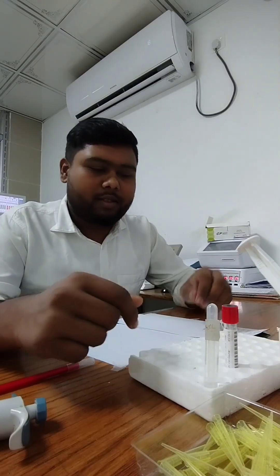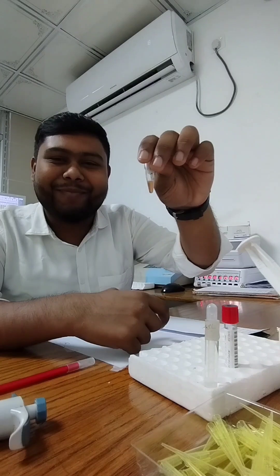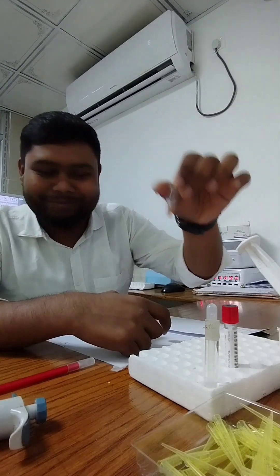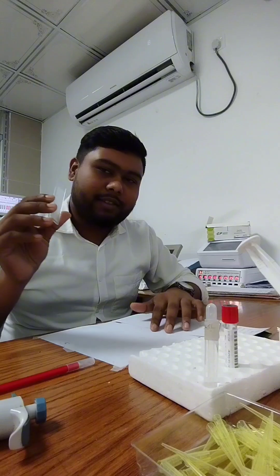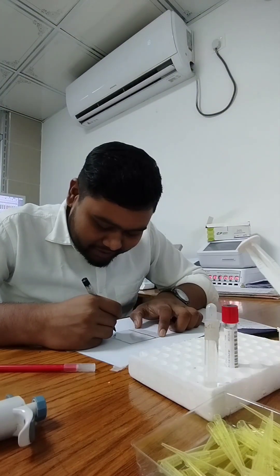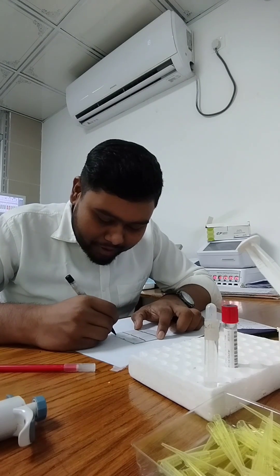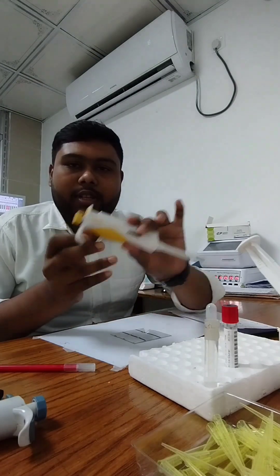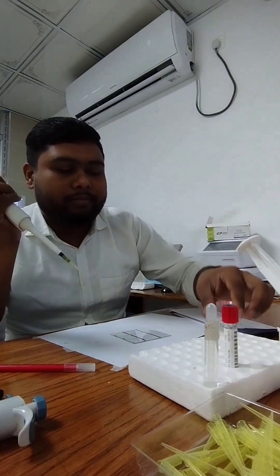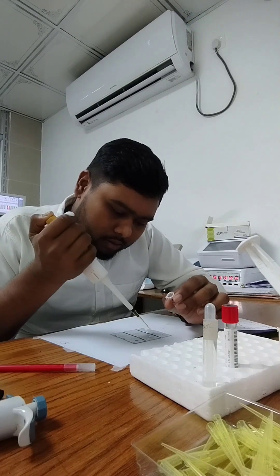Today I am testing a human blood sample — this is called serum. This is the blood slide. I take the blood slide and use a micro pipette to take 10 microliters of the serum.